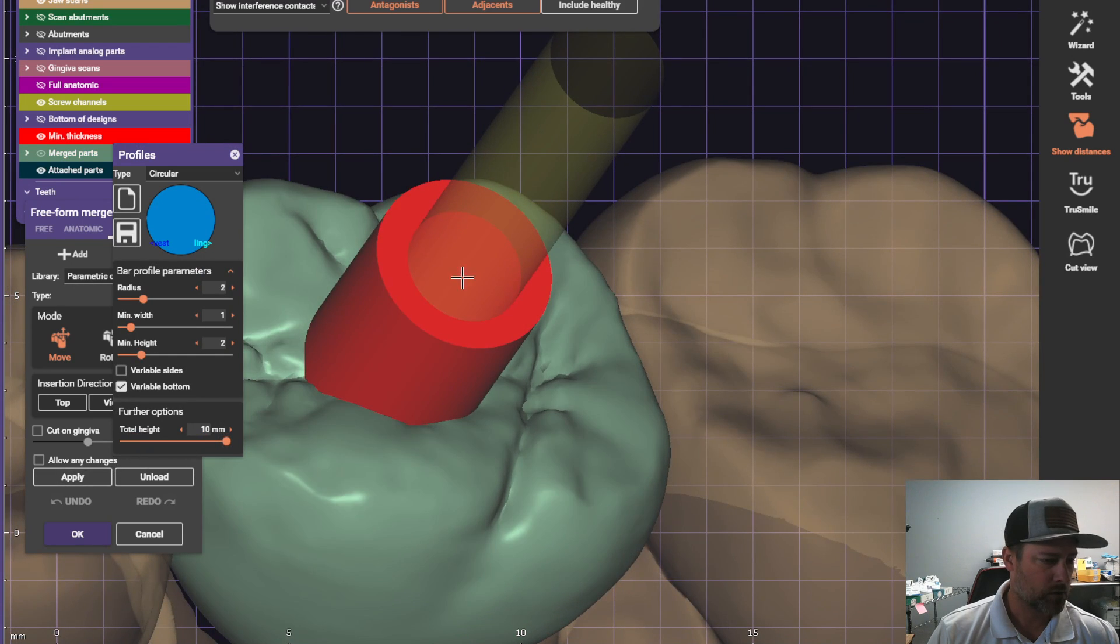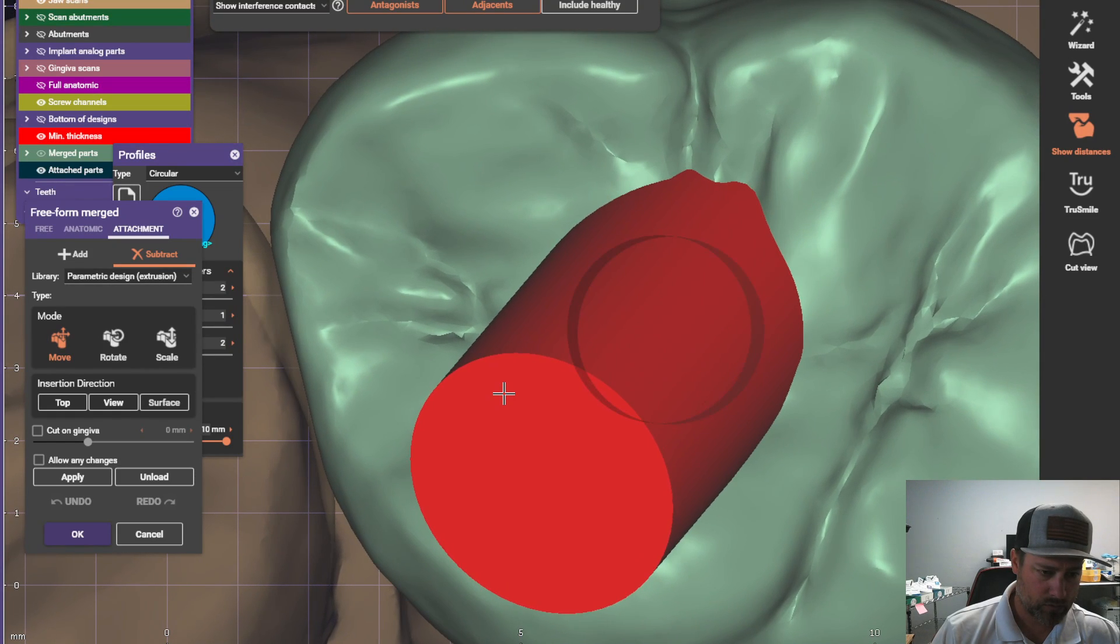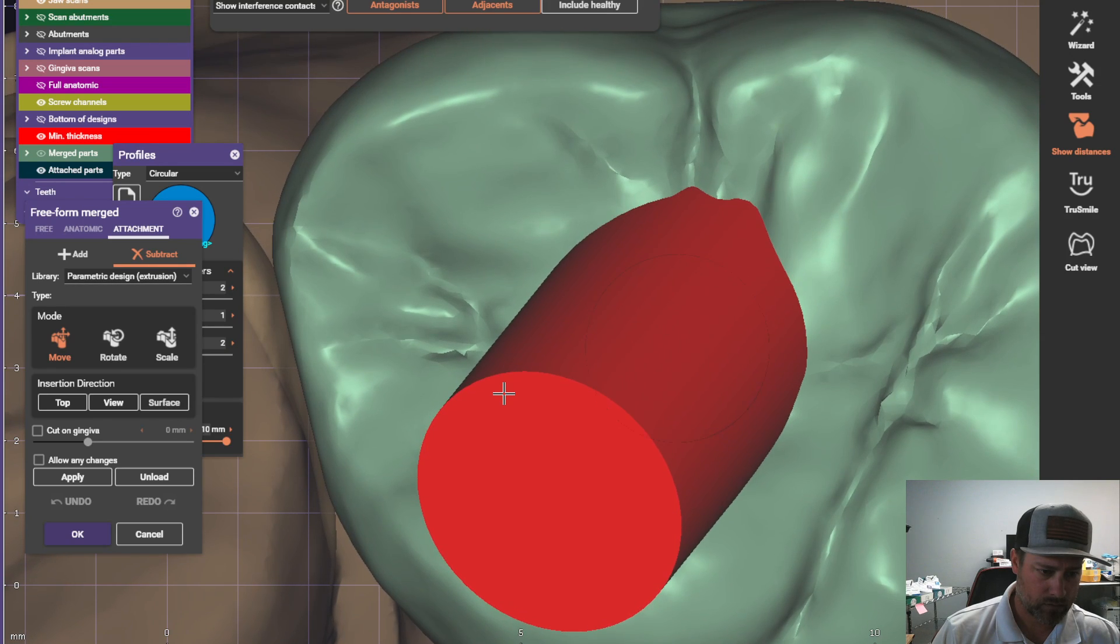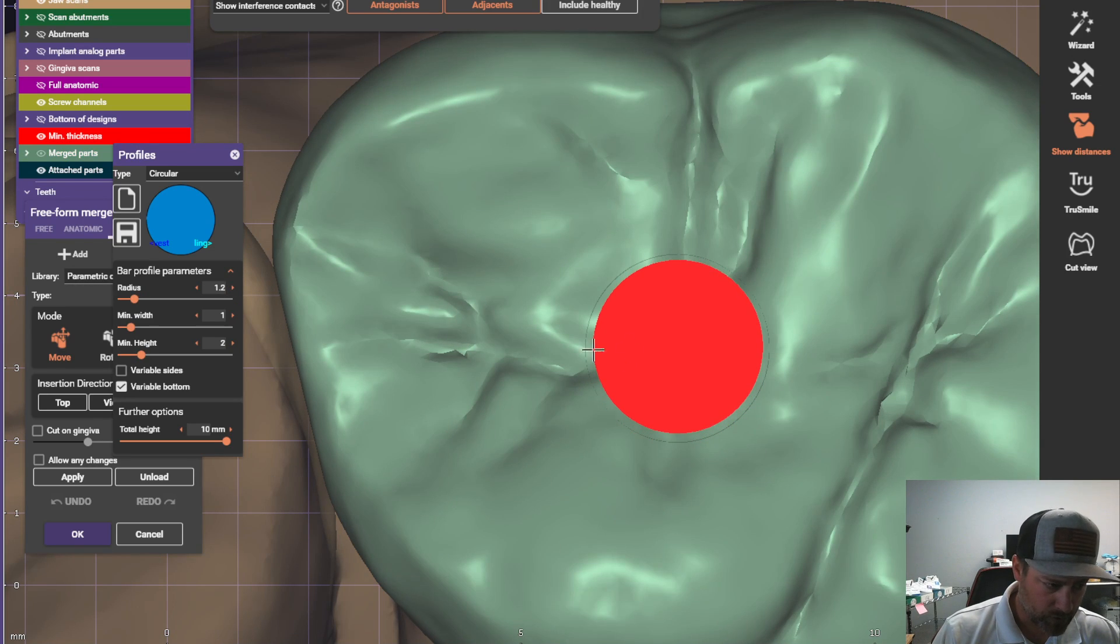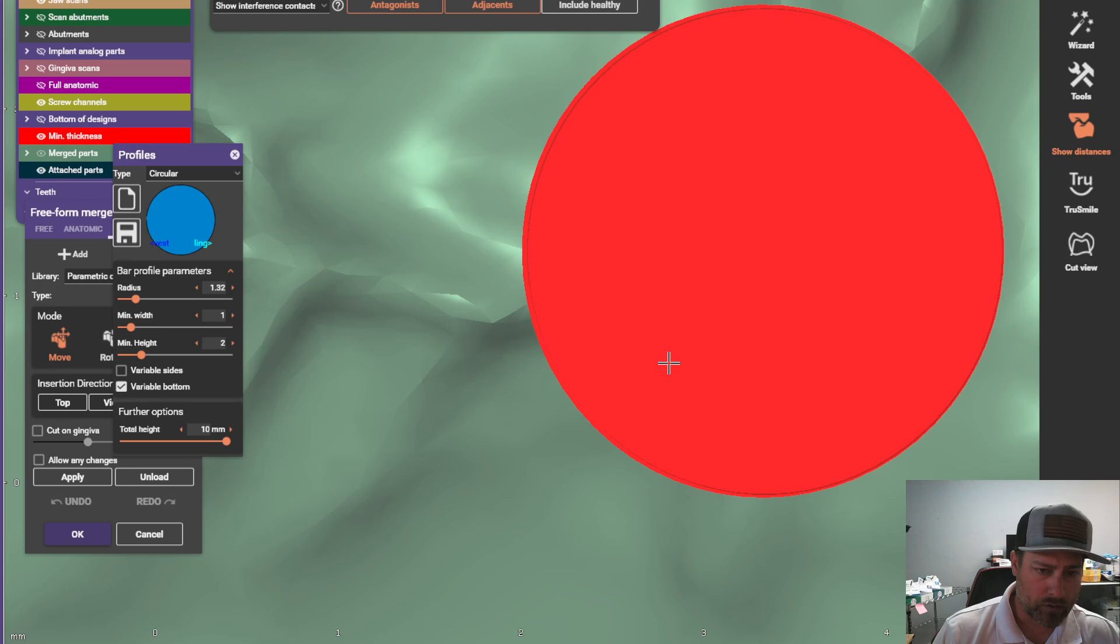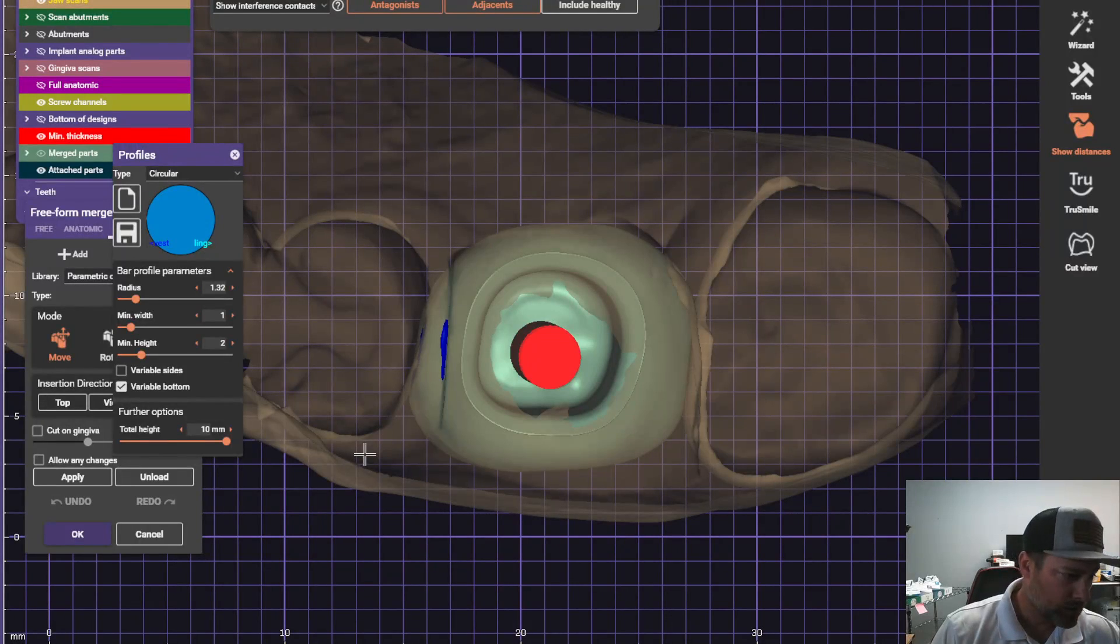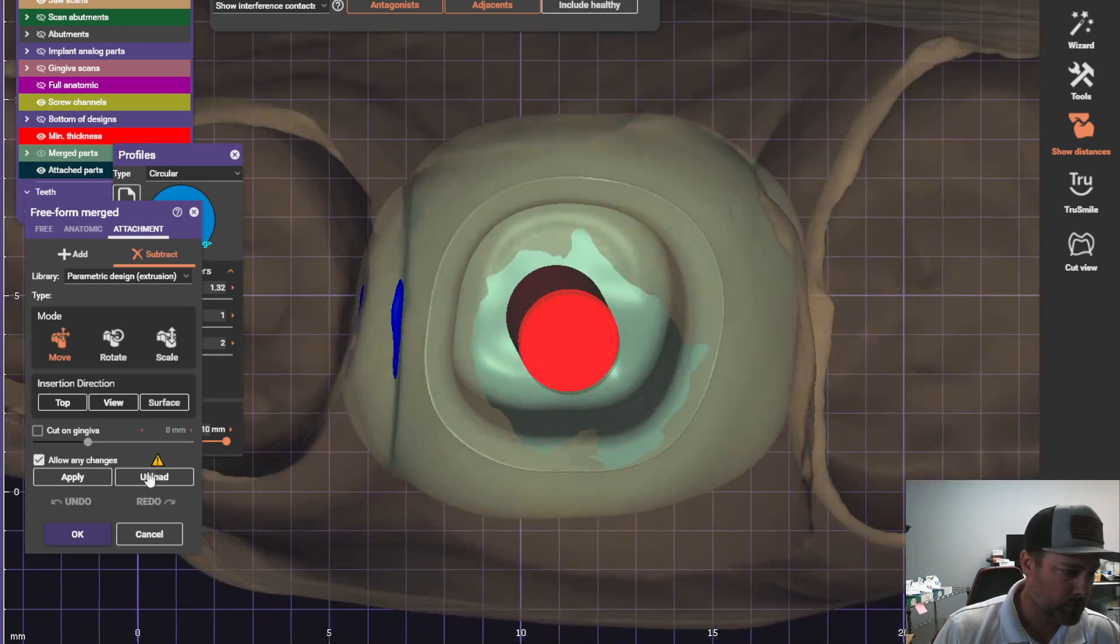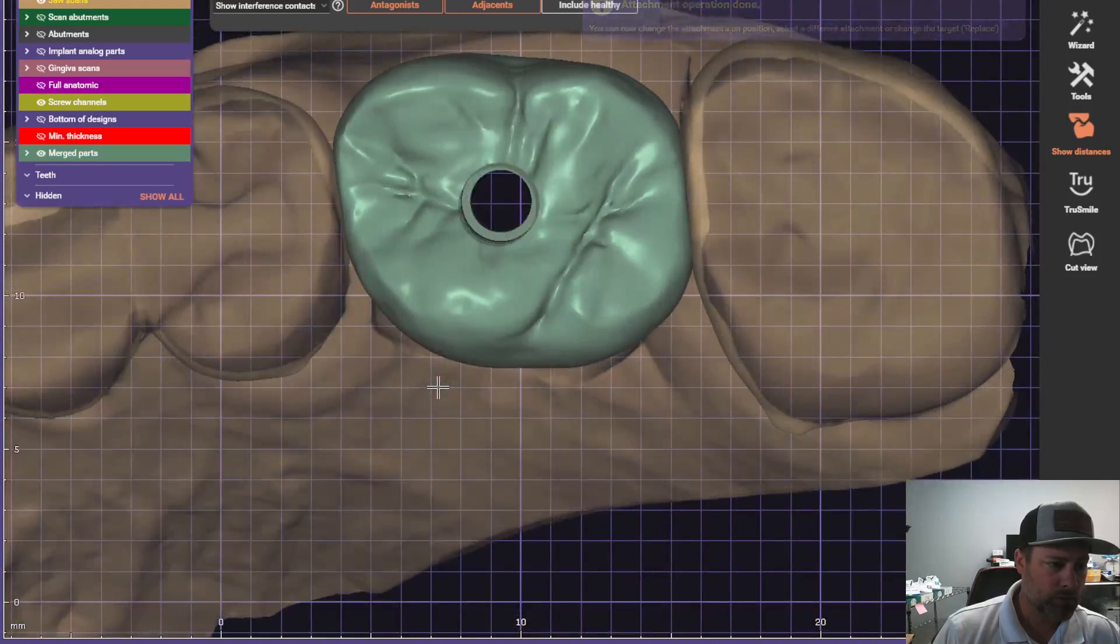So that's why I take a look at, go straight down on the screw hole. It can be kind of a pain sometimes. There are other ways to do it, but this is just fine. Okay. So now we need to make the same size as the screw hole. Usually they're about 1.2. This one's a little bit bigger. 1.32. All right. This is the length of the circle right here. Let me see. You want to make sure you're all the way through. Click on apply. Allow any changes. If you don't click on this, it won't go through the minimum thickness threshold. Click apply. And then click OK. And now you have your crown, the screw-retainable access hole.